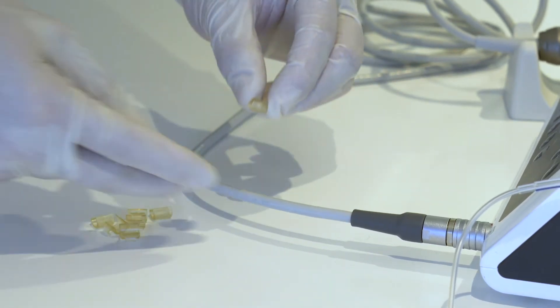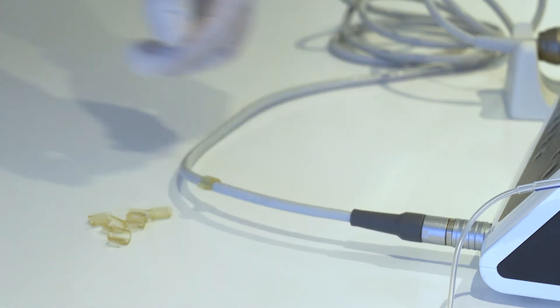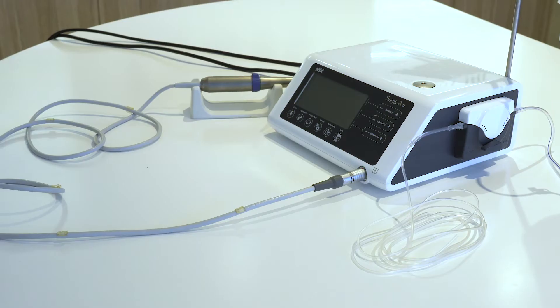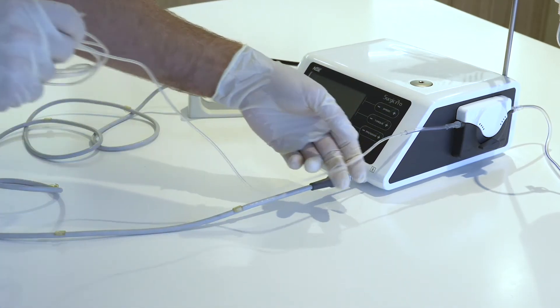Open the tube cap to supply air into the bottle. Clip the tube holders to the motor cable.